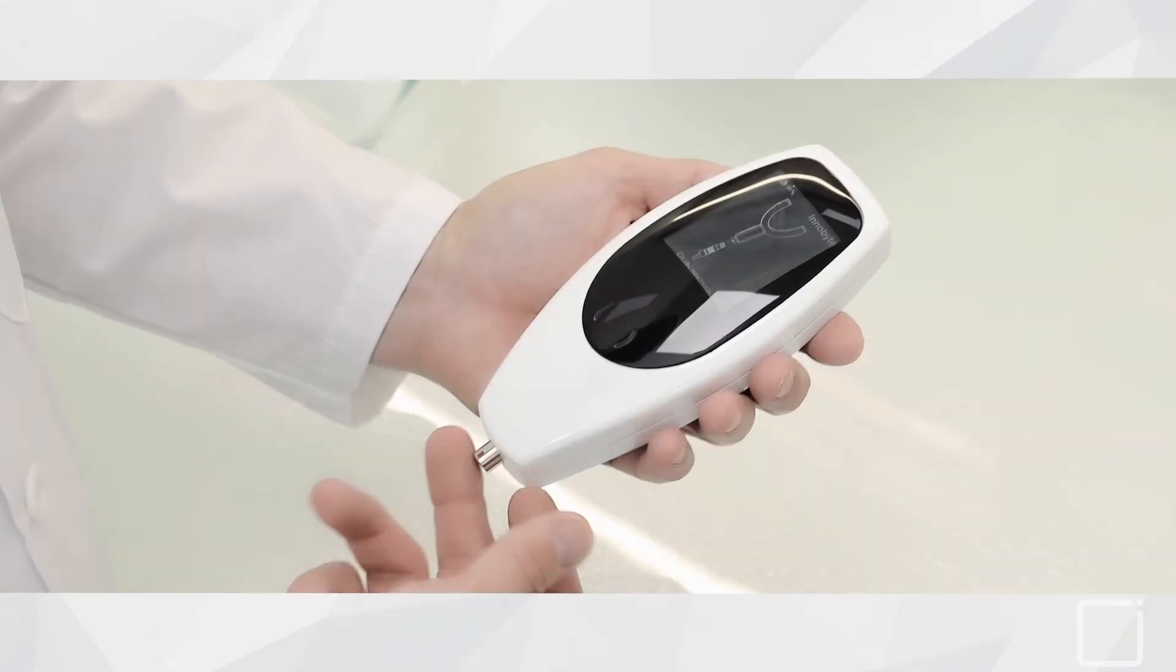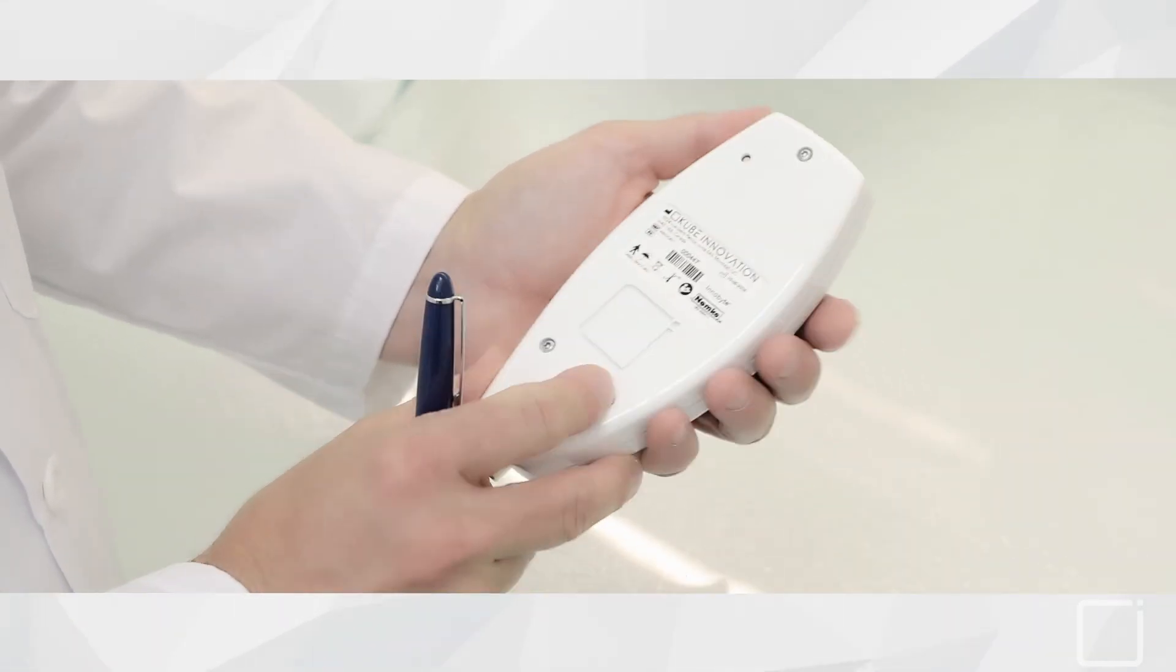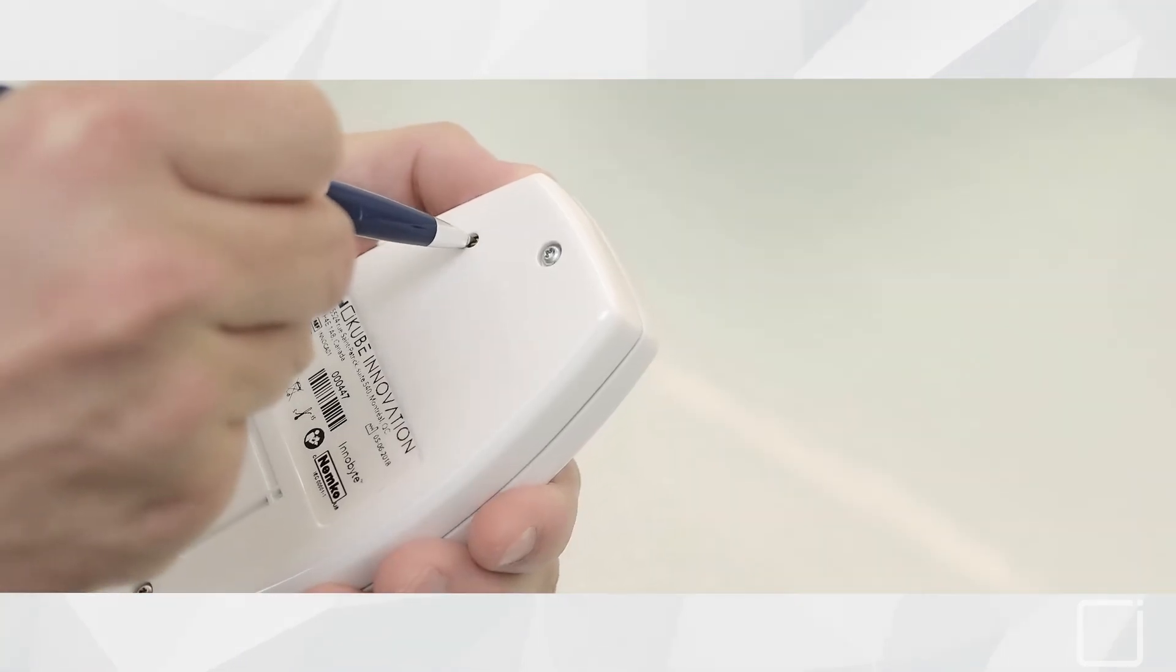If you are encountering an issue, on the back of your device there is a small opening with a reset button that can be activated with a pen.